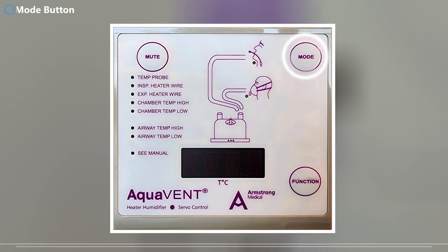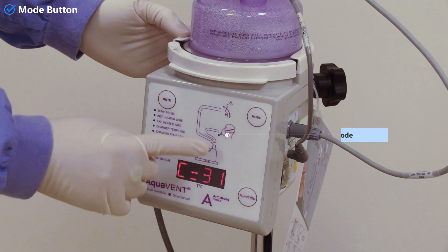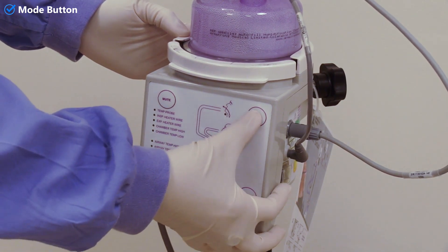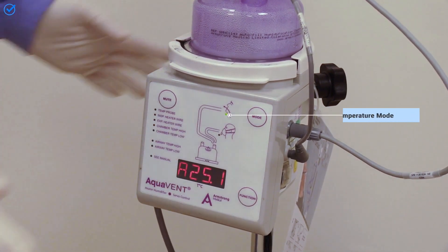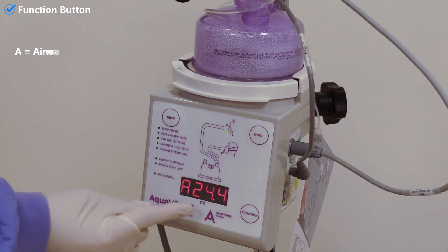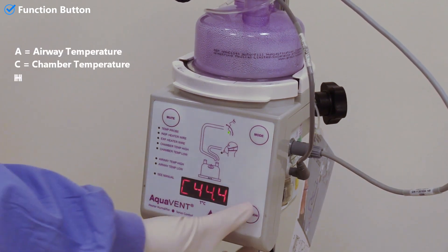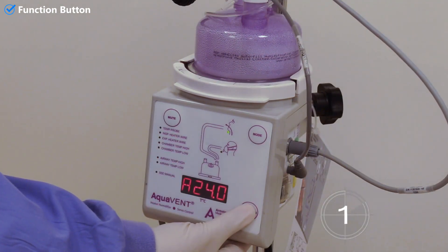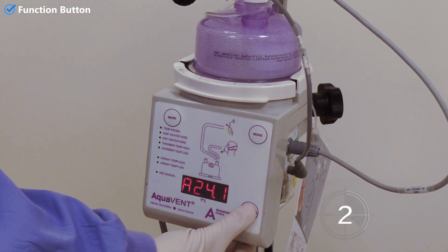The heater humidifier device has three buttons. The mode button allows you to choose between high and low modes of circuit heating. Currently it is in the low temperature mode, delivering 34 to 35 degrees Celsius. In the high temperature mode, it can deliver up to 40 to 41 degrees Celsius. The function button allows you to choose between three temperature readings: A stands for airway temperature, C shows chamber temperature, and H displays heating plate temperature. You can lock the screen by pressing the function button for three seconds; to unlock, do the same.